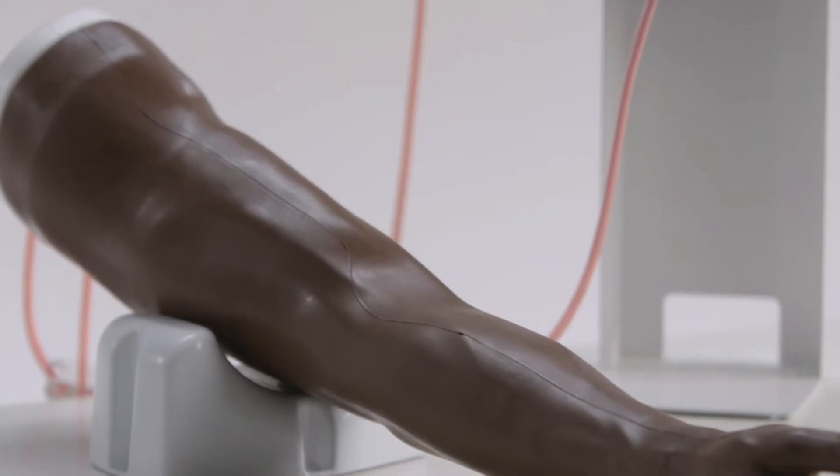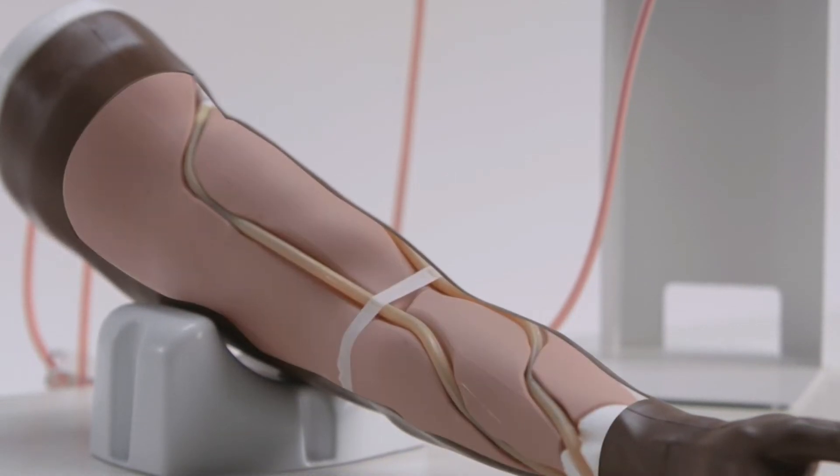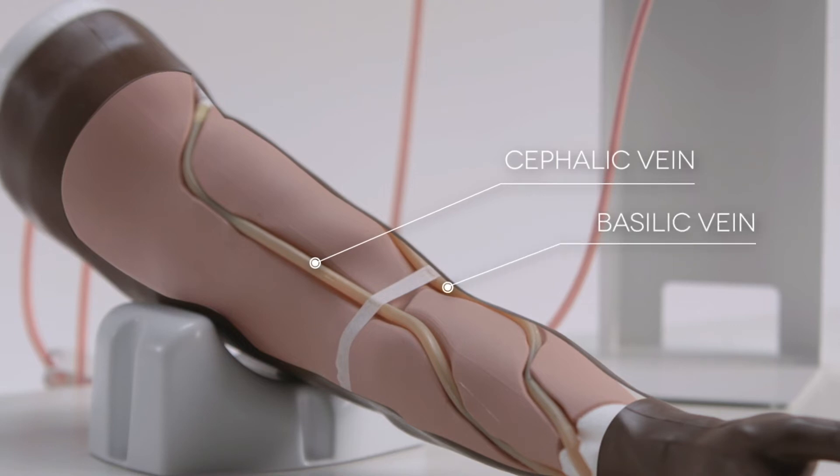The basic model with its simple vein system and a robust gravity feed blood system is designed for learning fundamental skills of venipuncture.